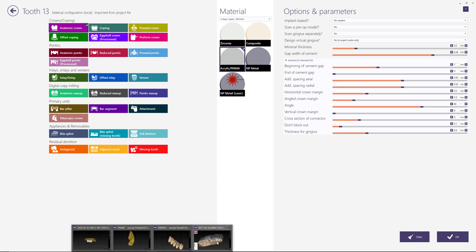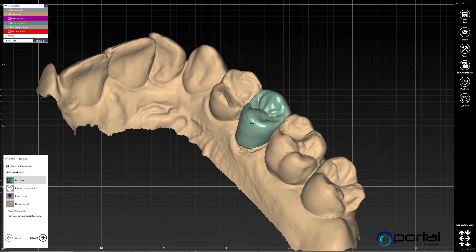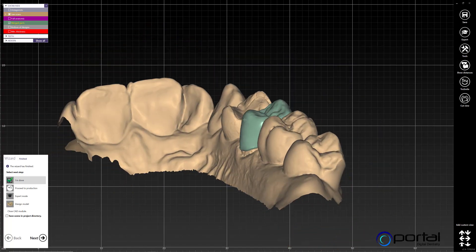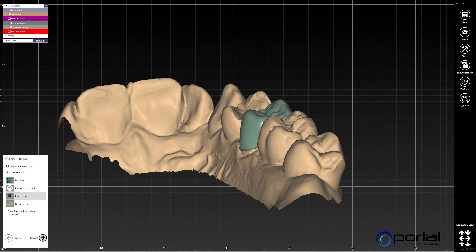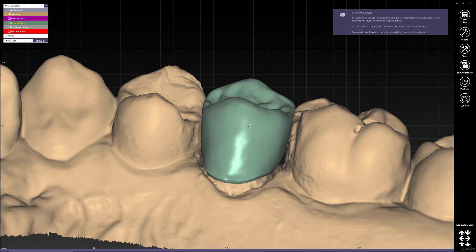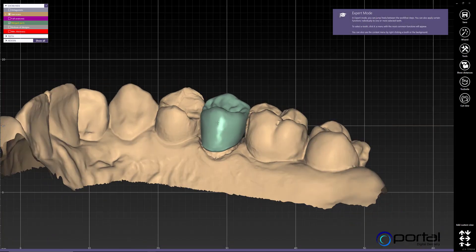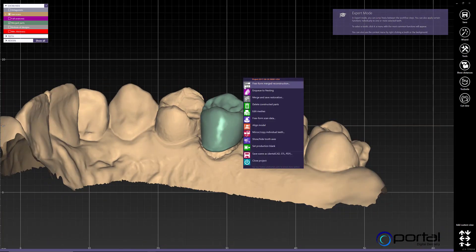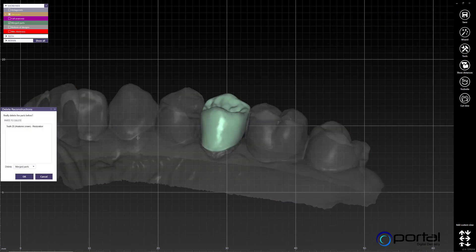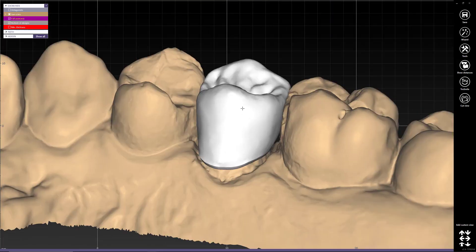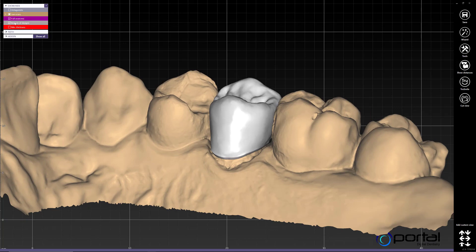So let's pretend we are here — we're done with the design, and this has been designed with the parameters for zirconia, and now we want to go ahead and change them to the acrylic PMMA. The best way to do this is to go into expert mode. Because I'm loading a case of a crown that's already designed, I will have to delete constructed parts, and now it separates my design into different layers — these are all the layers that it separates it into.